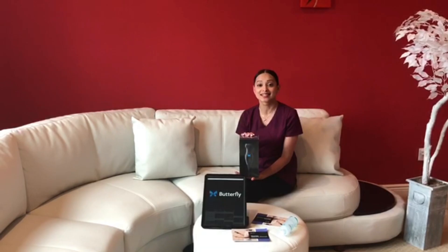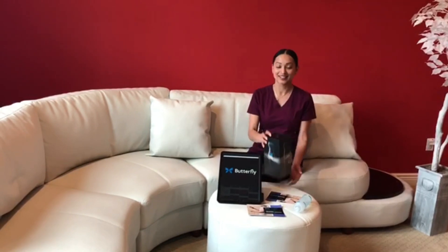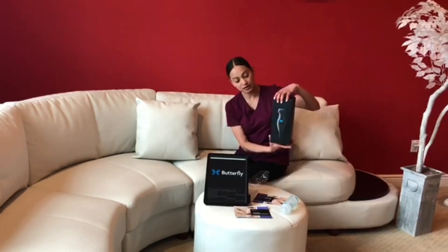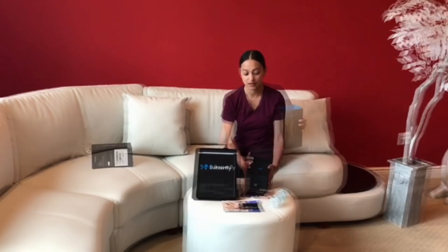We're going to unbox this — this is so exciting. All right, first it comes in and we're going to very carefully open this. See, it slides right out.